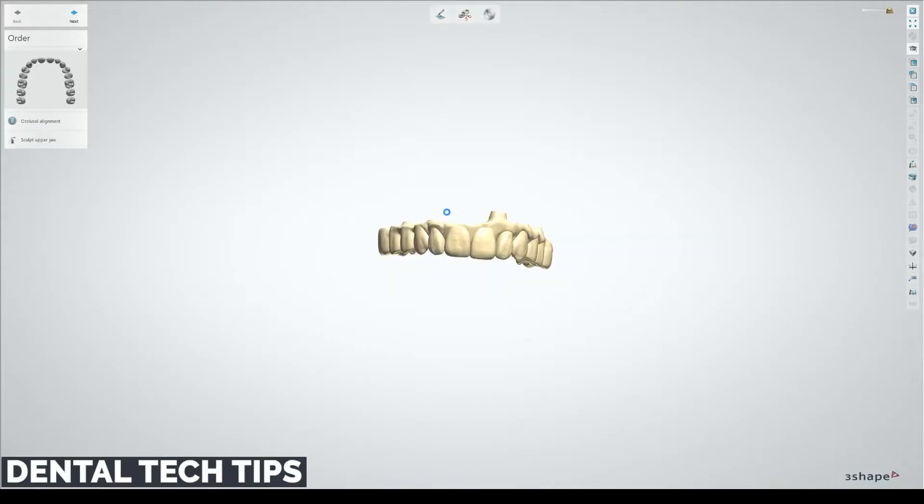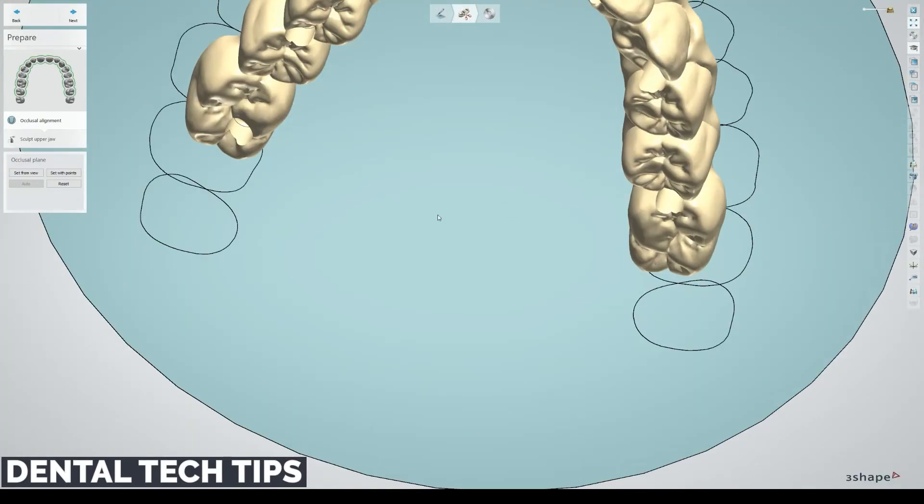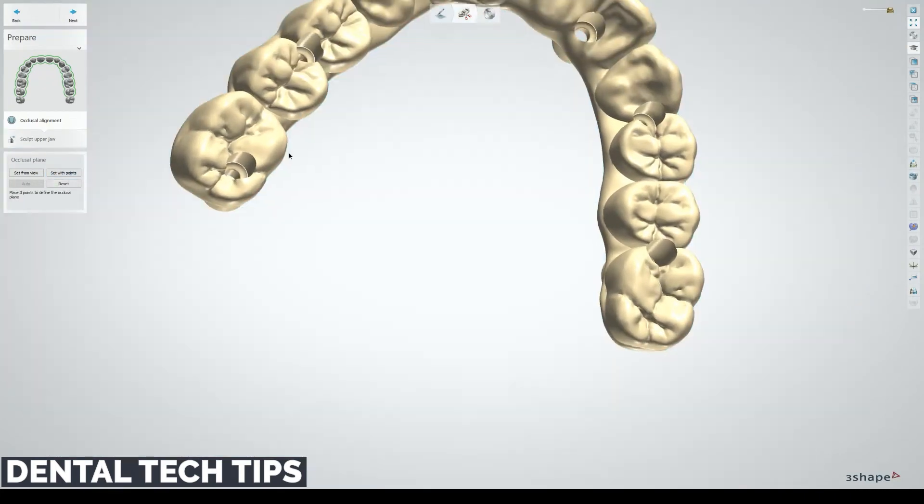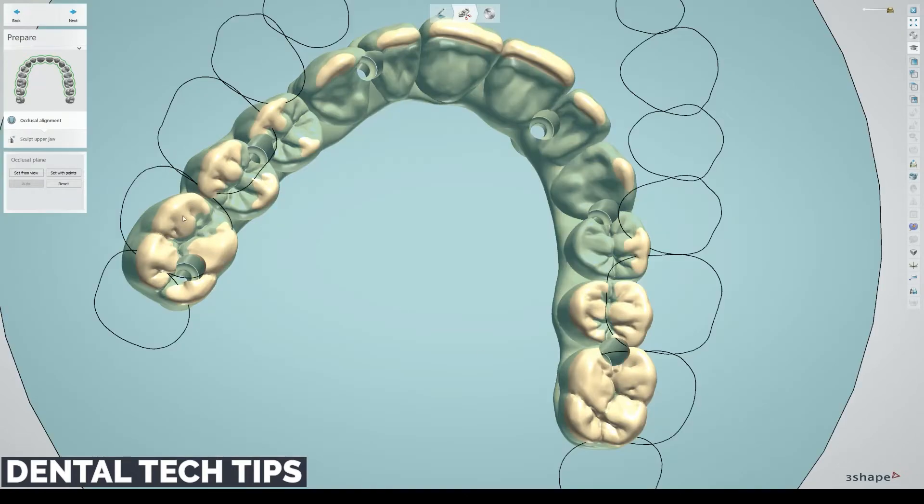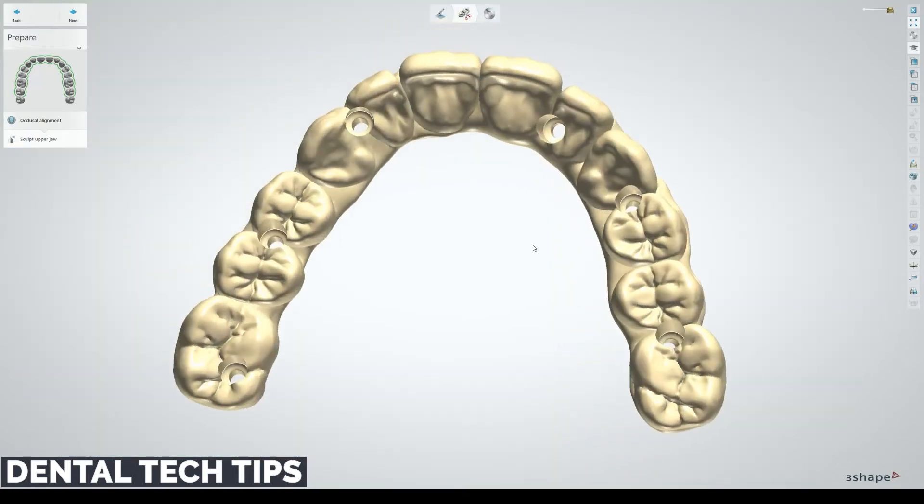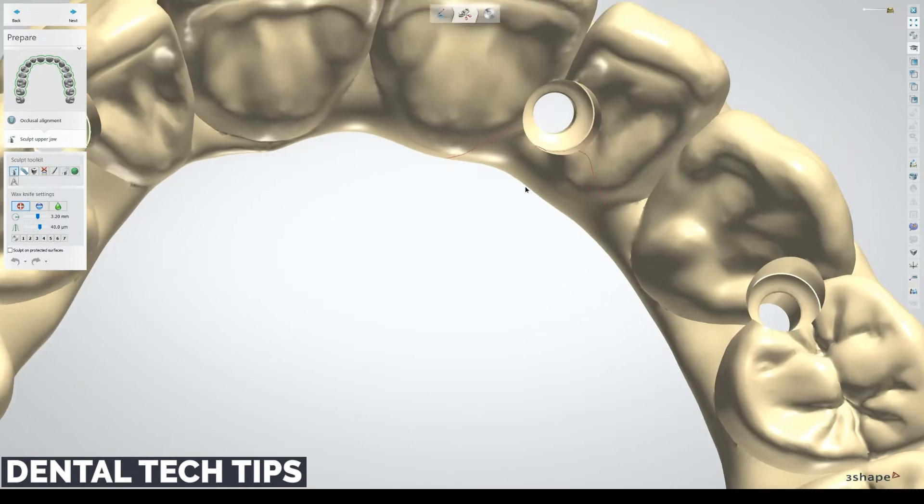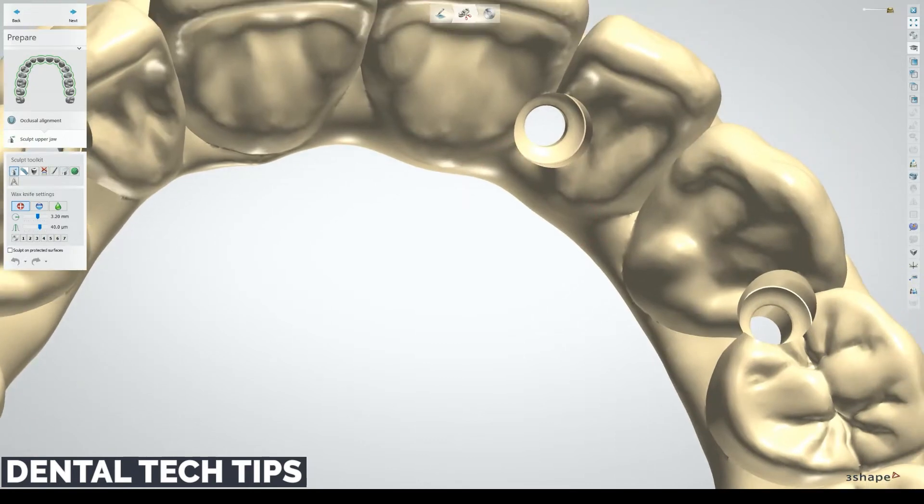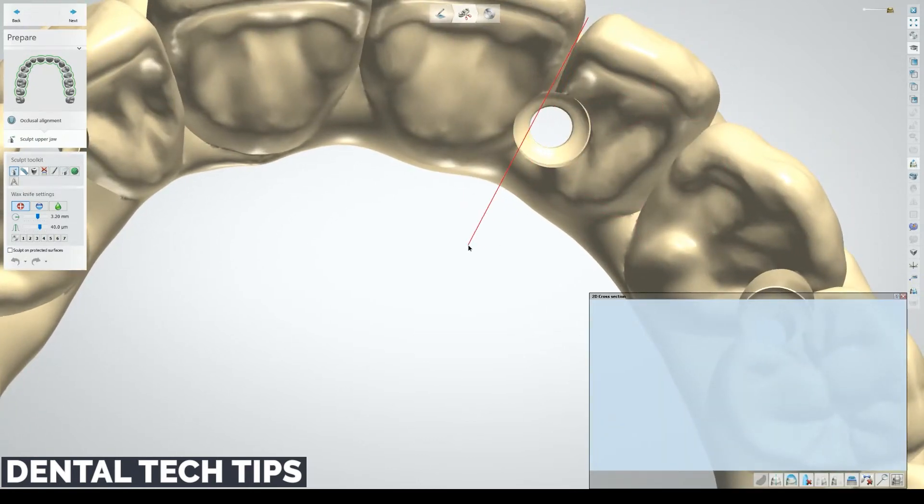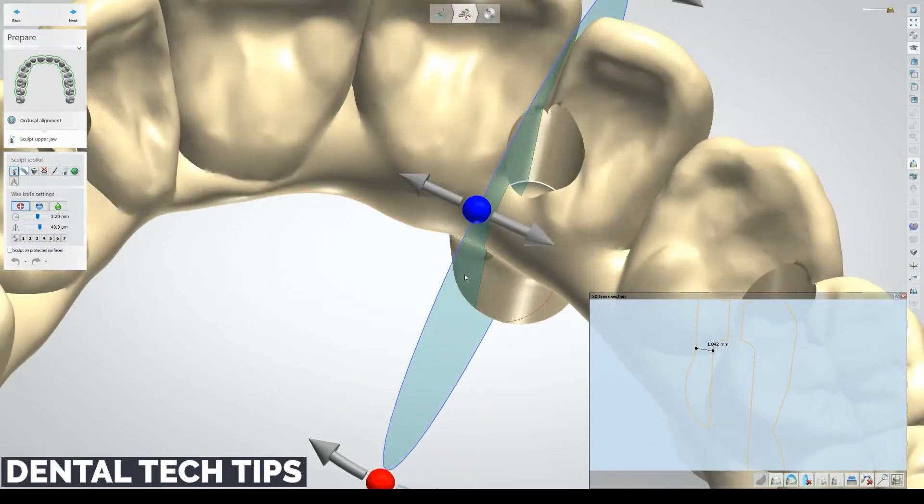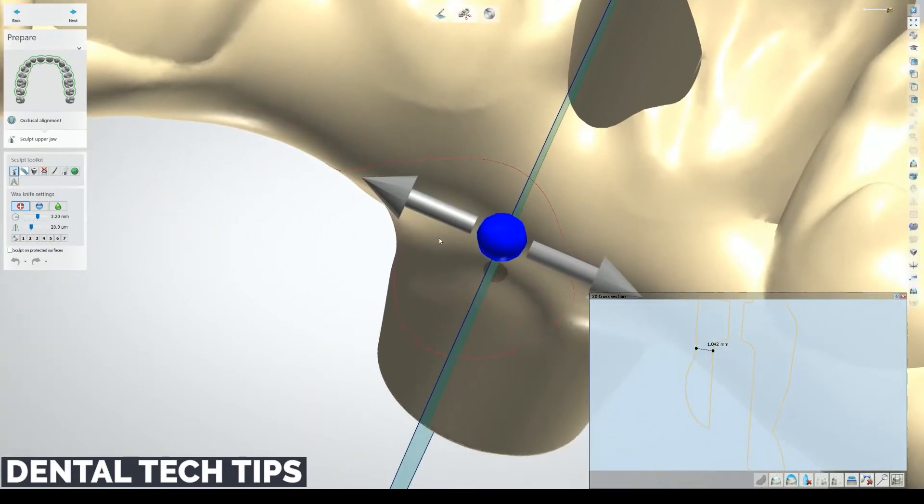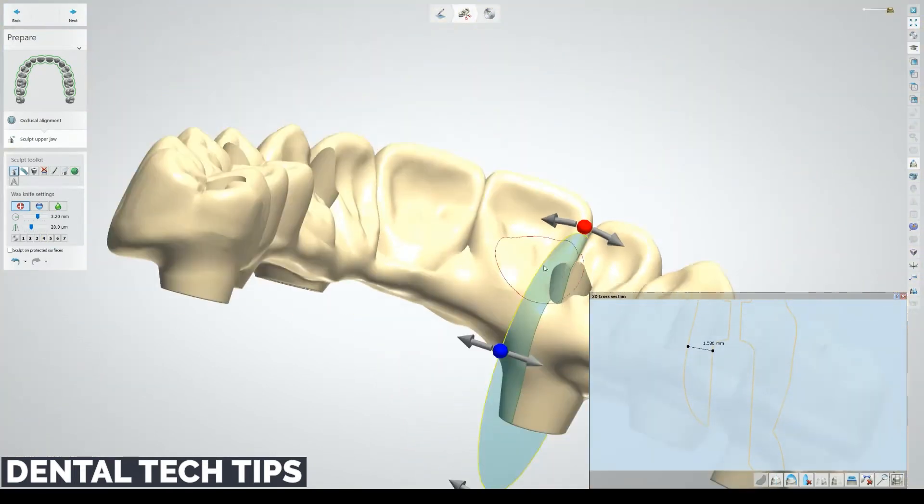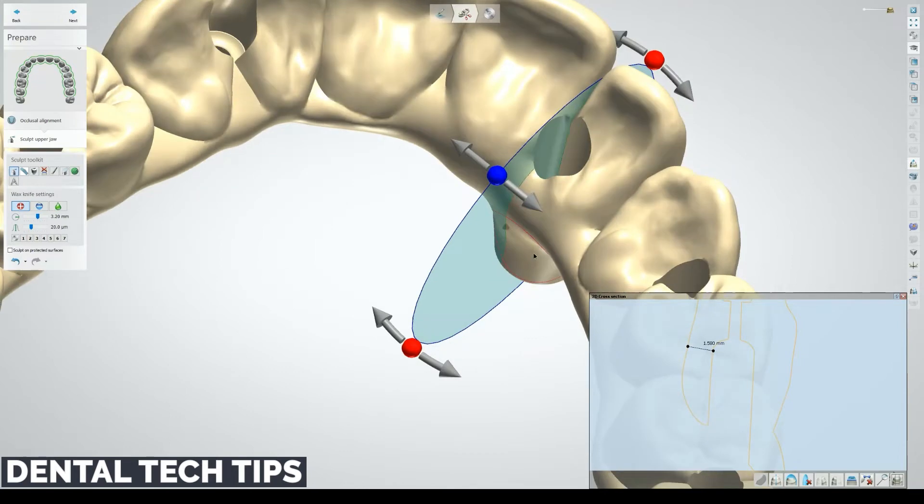The nice thing about copy dentures, as I say all the time, is it's essentially a solid object editor. I really like that because it allows you to make little changes to something like this, a completed CAD design, pretty quickly. Here, let's use our cross section tool, take a quick peek. His concern was here, it's about a millimeter, not the best. You can use your sculpt tool here, sculpt it out a little bit. Now we're at one and a half millimeters.